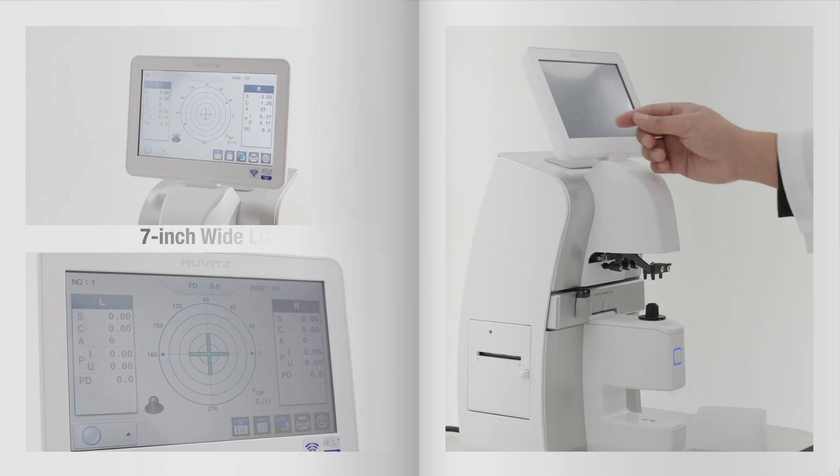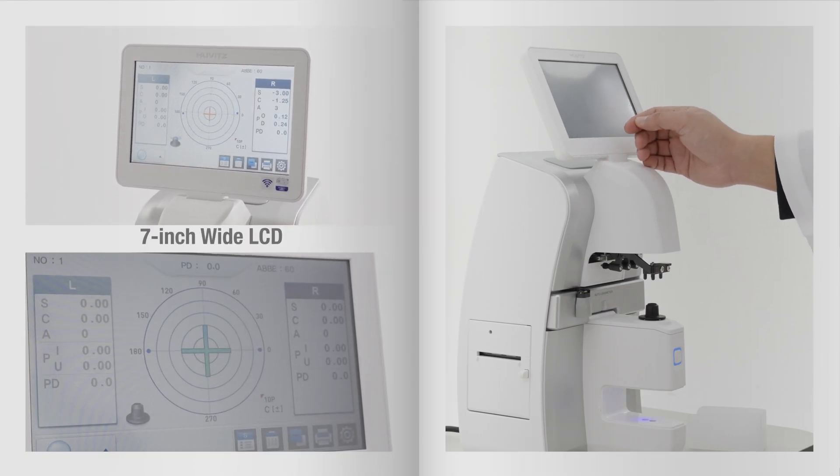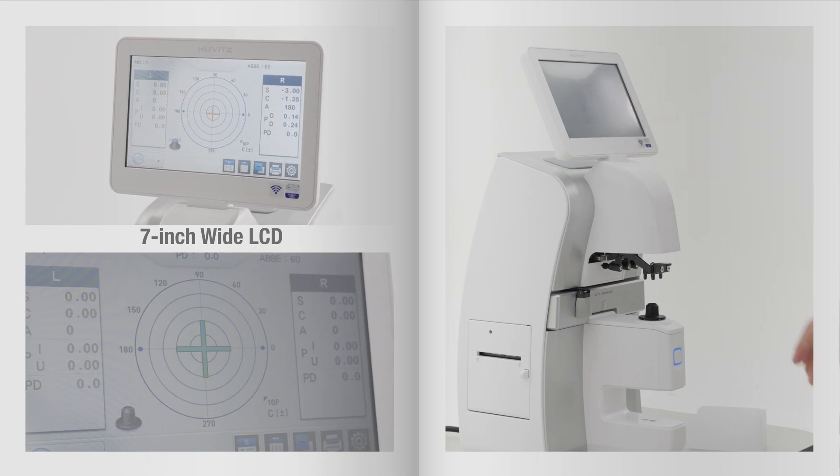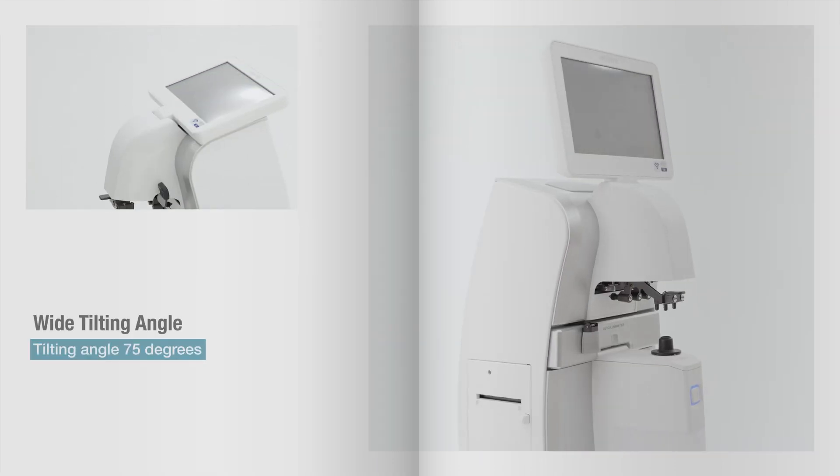The HLM 9000 is more convenient to use with its 7-inch wide LCD monitor and a wide tilting angle.